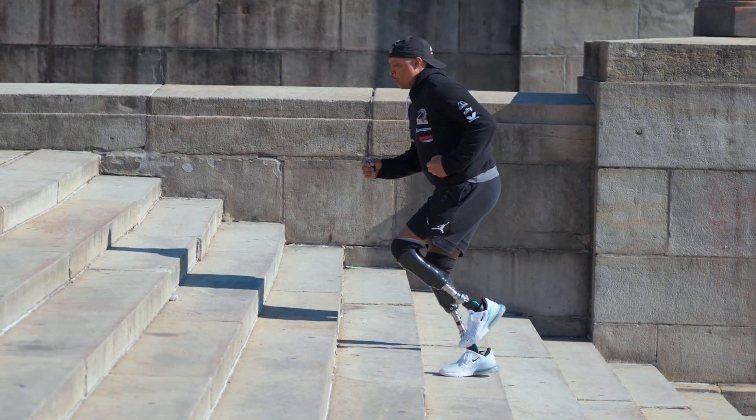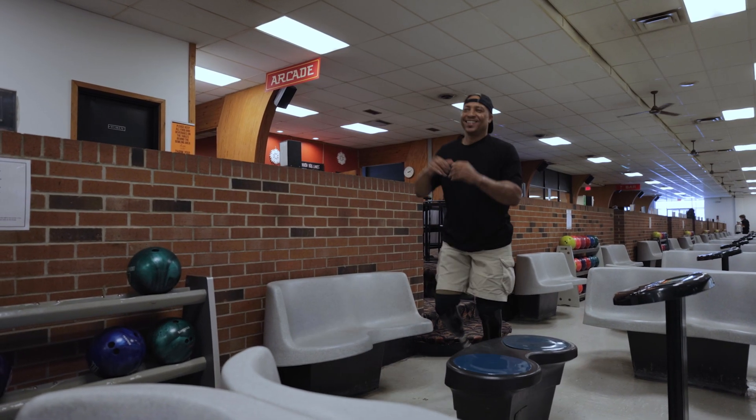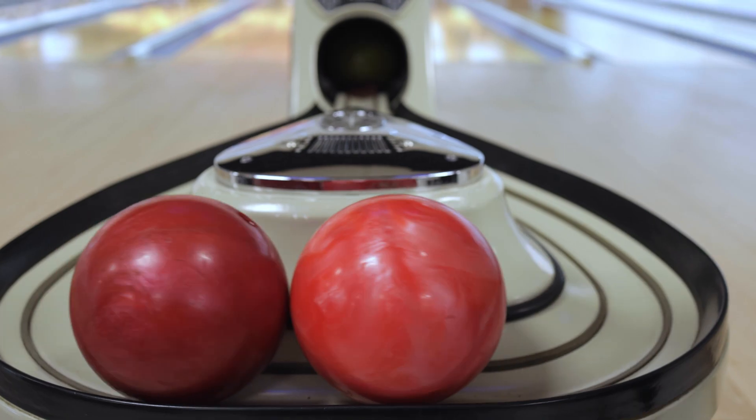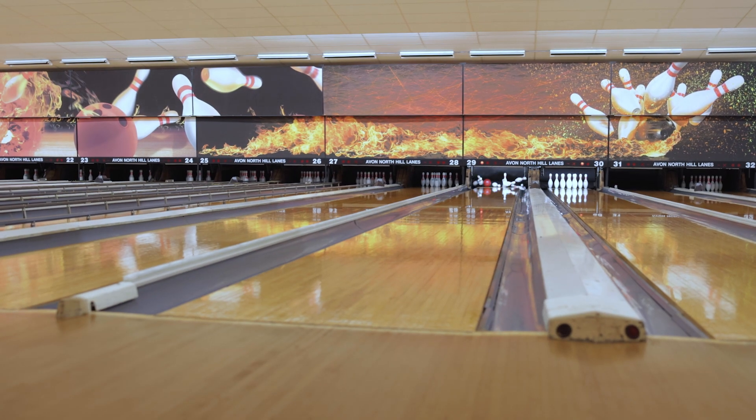For the travelers, idealists, and thrill-seekers. For long days, making memories and feeling your best self along the way, College Park understands the complexities of life's journey.